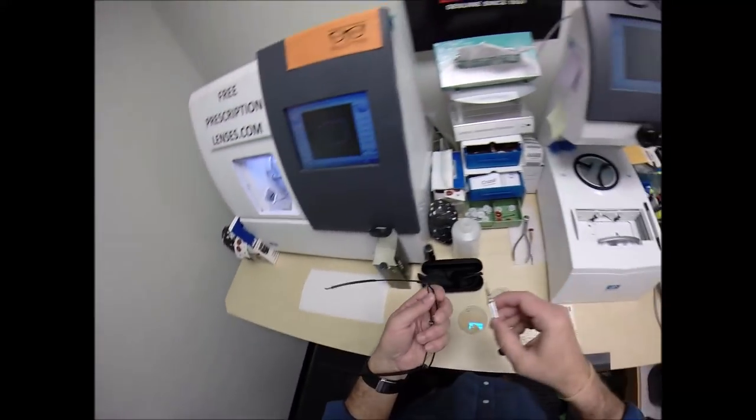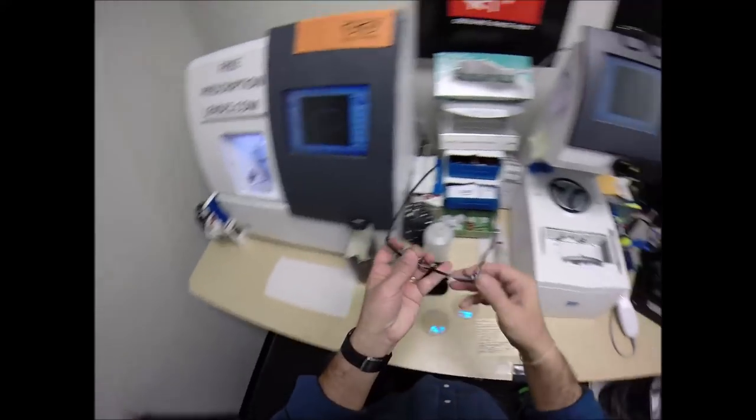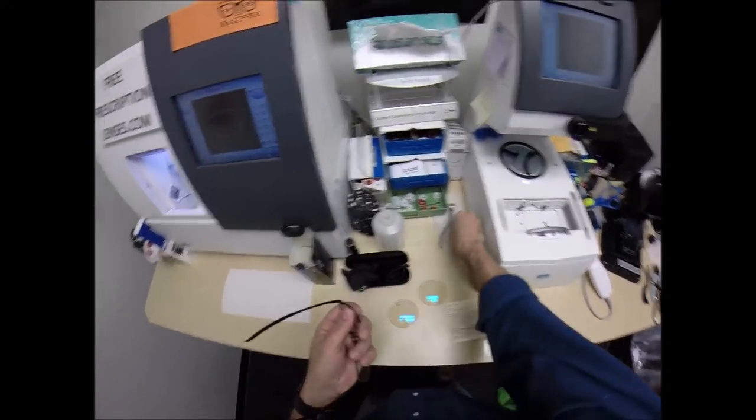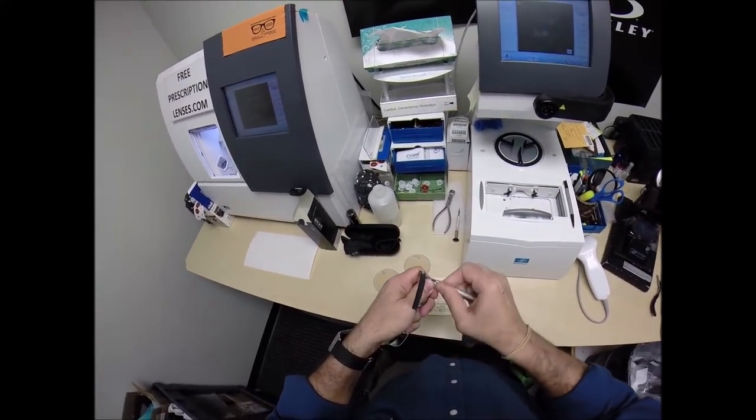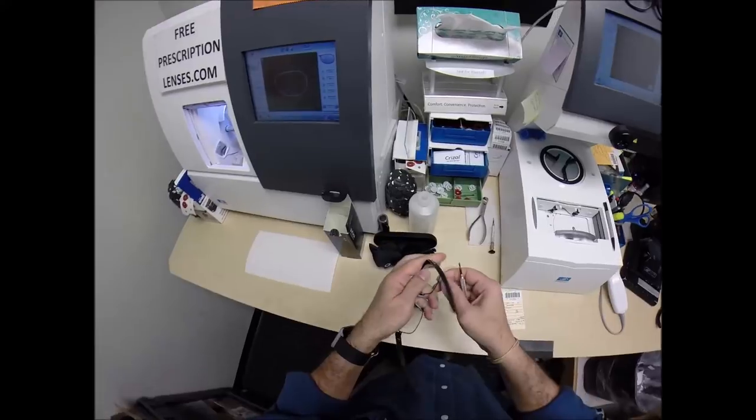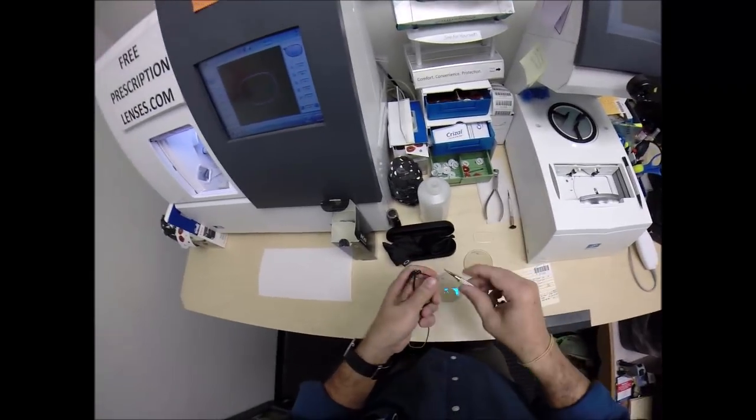I could take the measurements that I needed and then order the lenses for his frame. Now I do offer this frame if anyone wants to buy it brand new, but in the short term I'm going to take out his original lenses.